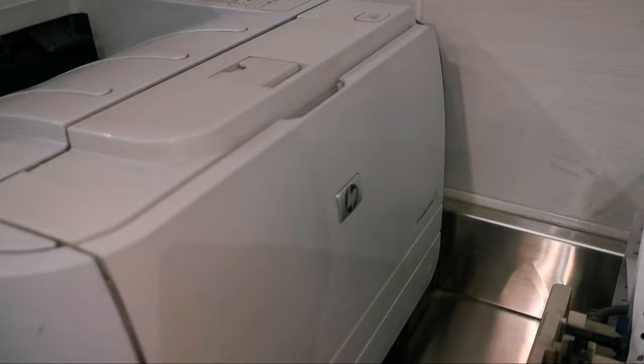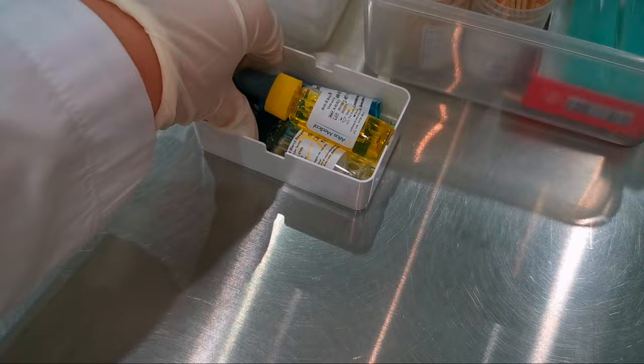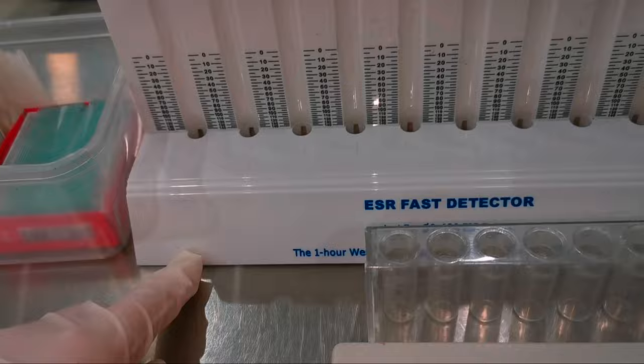Another printer for Ruby analyzer. Antiserum, pipette, applicator sticks and slides. This is the ESR detector.